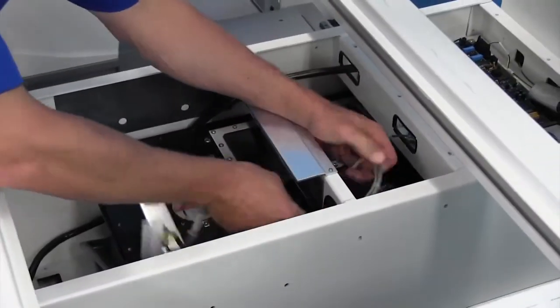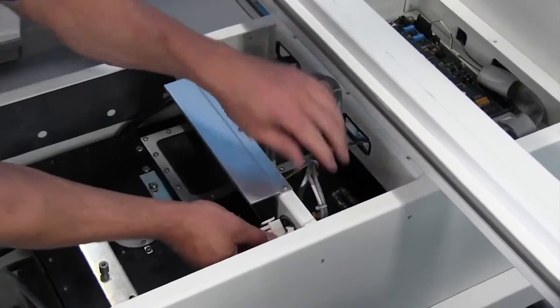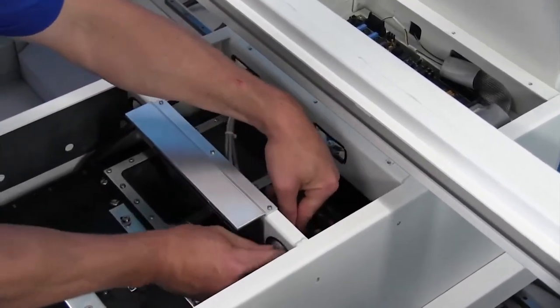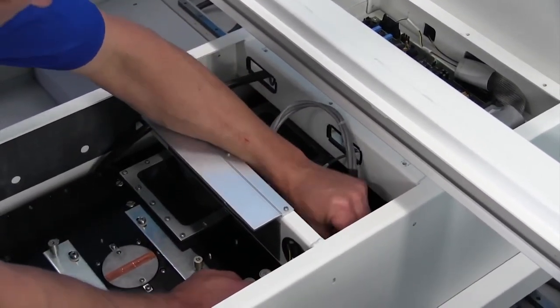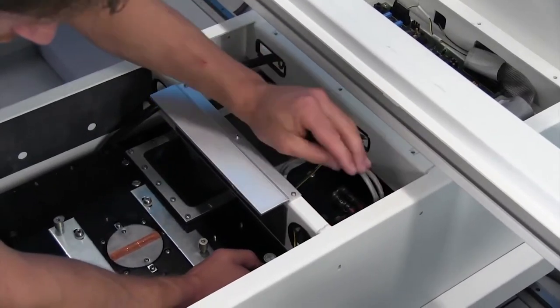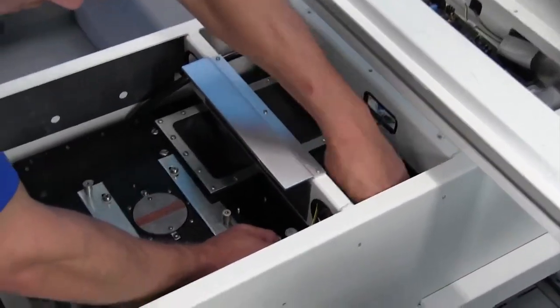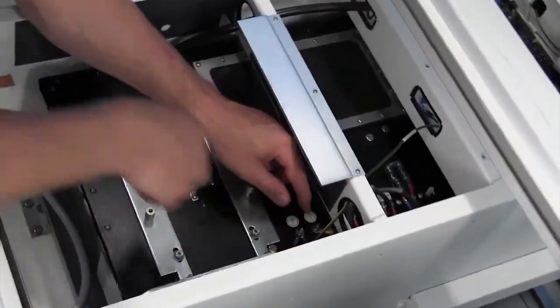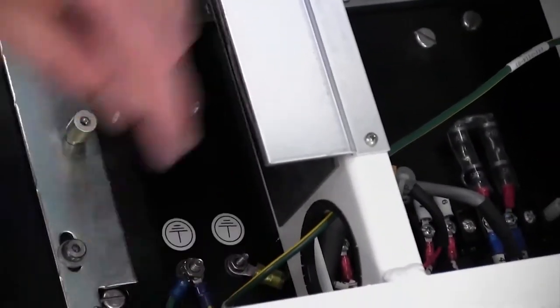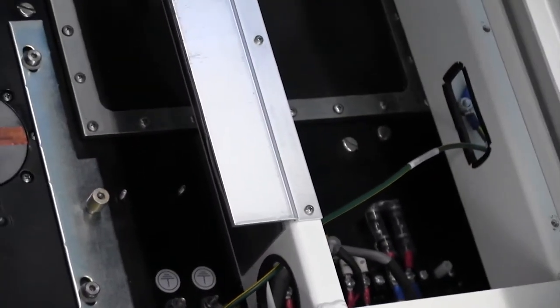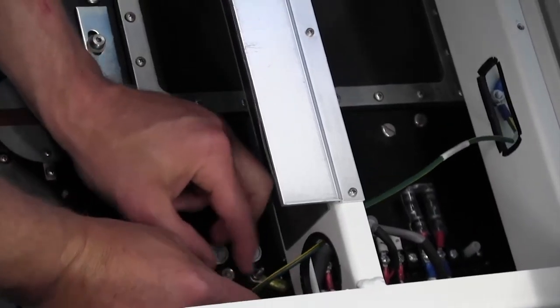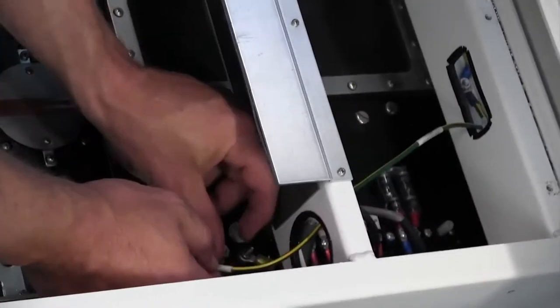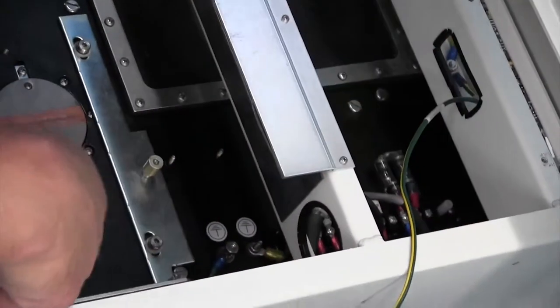This cable connected to that terminal strip can be pulled through. Very carefully of course. There is a ground wire connecting to the top of the tank that needs to be removed. That goes back here toward the C-arm interface board again.